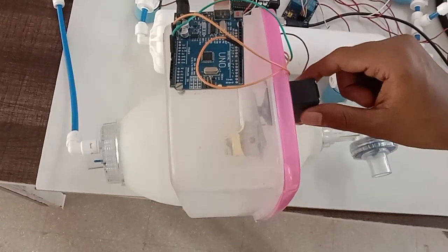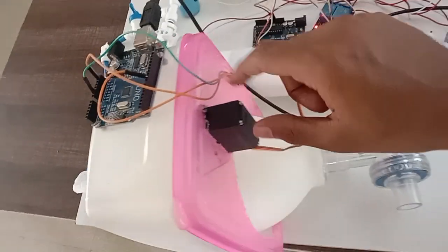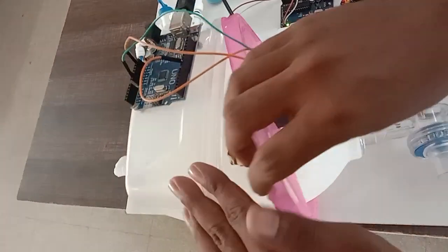And here you can see, this is the servo motor. This is a mechanical camshaft, mechanical camshaft.